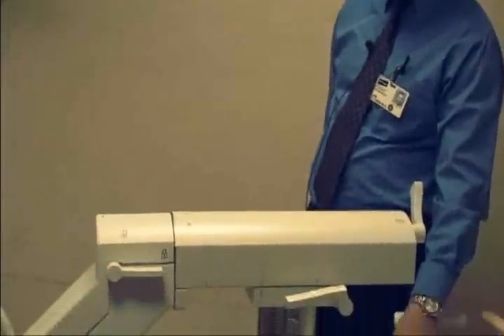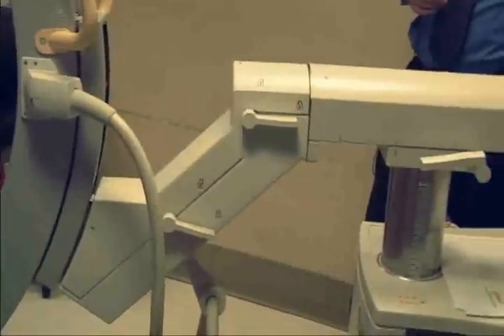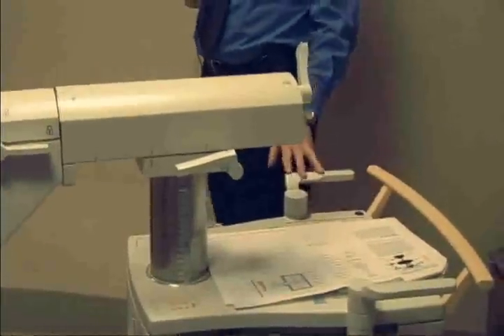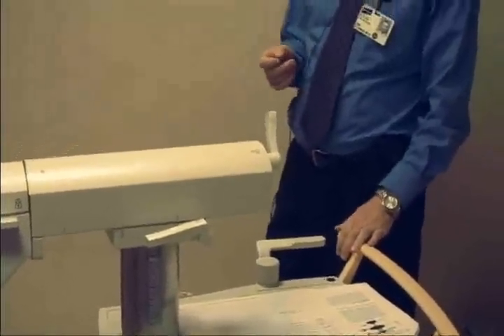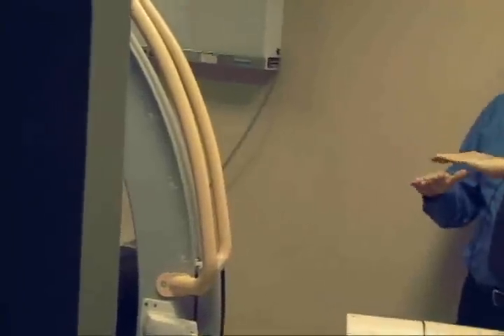The C-arm basically follows the same ideas of the fluoroscopic imaging chain. It starts from the x-ray generator, which you can utilize for the regulation of the strength of the x-rays by manipulating the kilovolts or milliamps. The next component is the x-ray tube, which generates the x-ray beam, followed by a collimator and a filter. The filter sits on top of the x-ray tube.